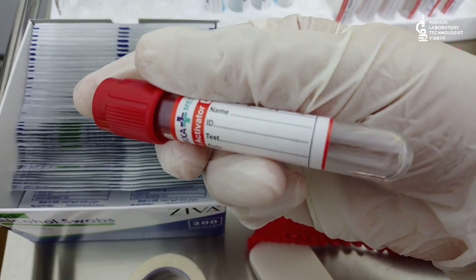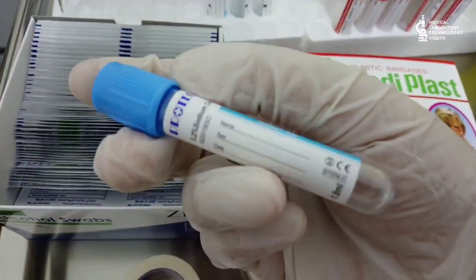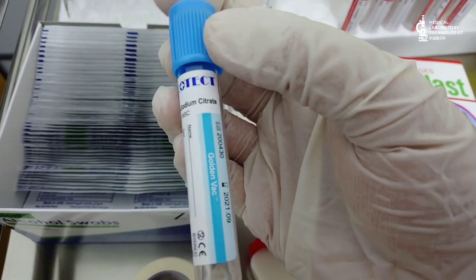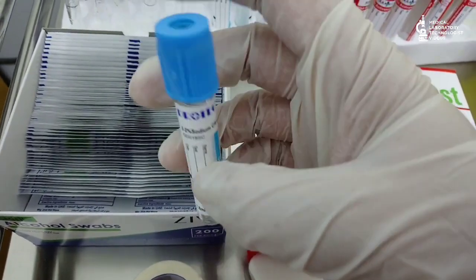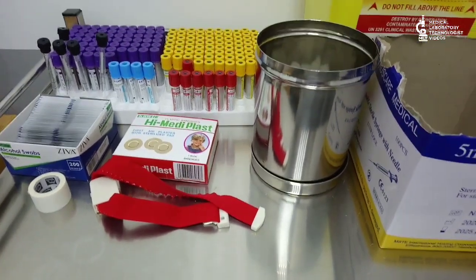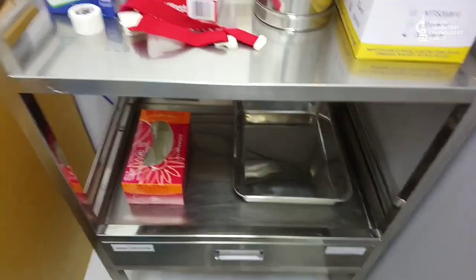One thing to note: on the tube it is written name, ID, test, and date — fill in all these columns so there is no mix-up between patient samples. Next is the sodium citrate tube — also 3.2% sodium citrate — but this tube has a blue top and is used for coagulation profile. As indicated on the tube, you must add the correct volume of blood. For anticoagulant tubes, you must mix the blood six to eight times before processing.